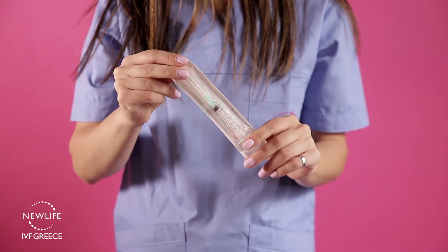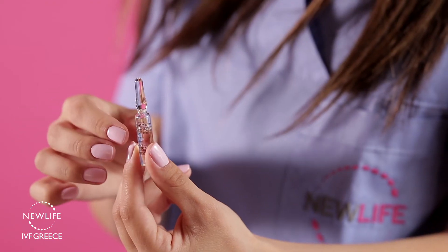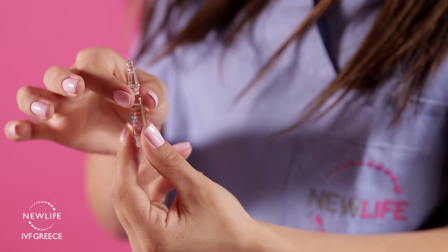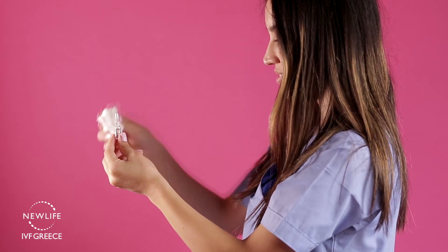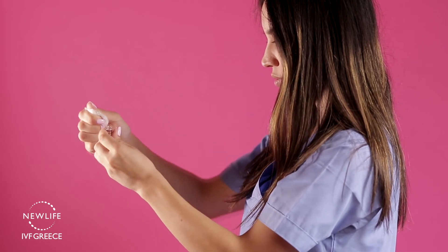The box contains one glass vial. Tap gently to remove any trapped liquid at the top of the ampule. Always use a cotton pad or gauze to break open the vial to avoid cutting yourself. Press with a backward motion to break open the vial.